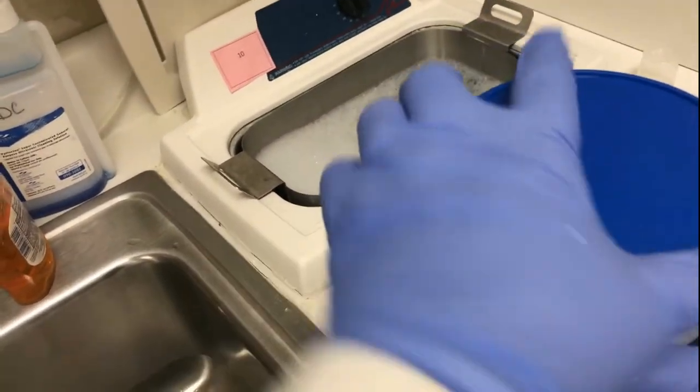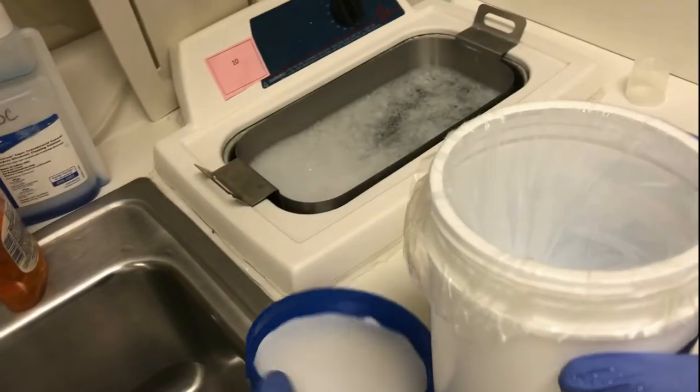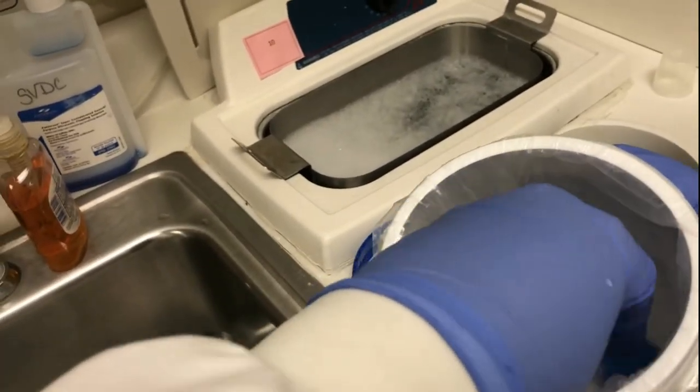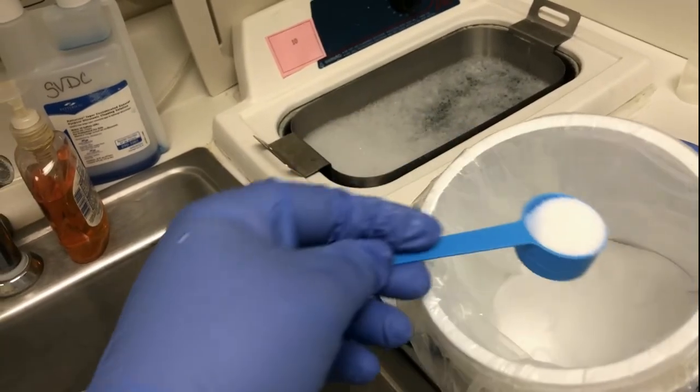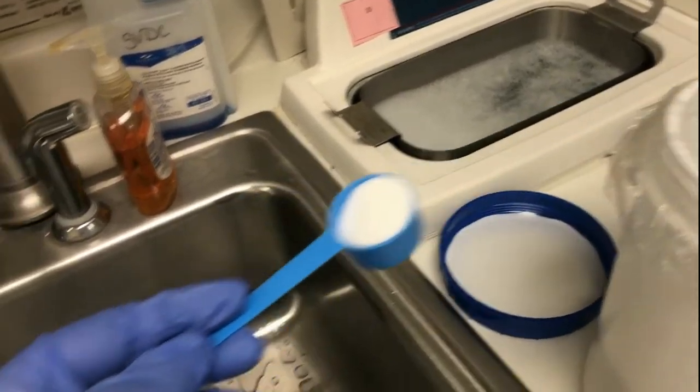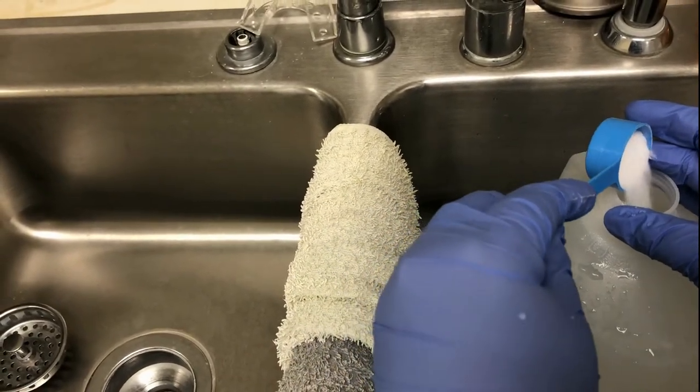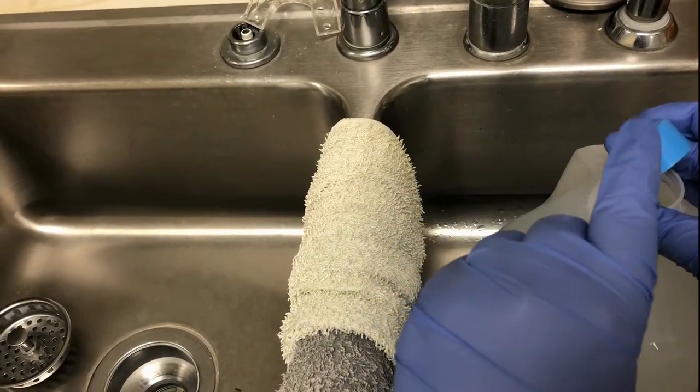This evacuation cleaner will help to deodorize and sanitize both evacuation lines, the saliva ejector, as well as the HVE. After dispensing the proper amount of evacuation cleaner, make sure you recap the original container.